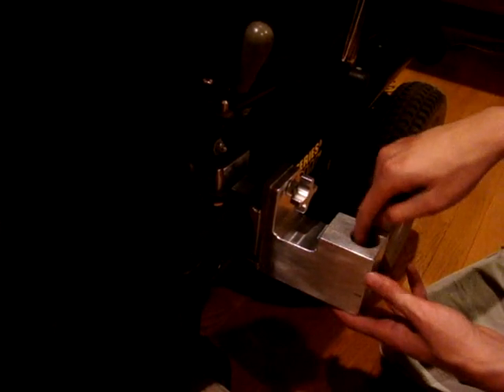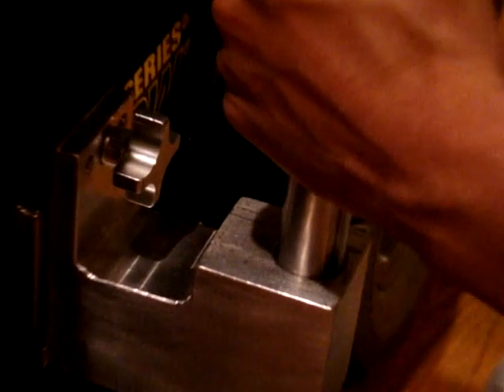And when we're done tightening this, we'll want to insert the adjustable arm into the drilled hole right here. We've added a lock and key mechanism so that the arm will always sit in the right orientation. And once it's there, it's locked nice and in place, and now it's ready for the client to use.